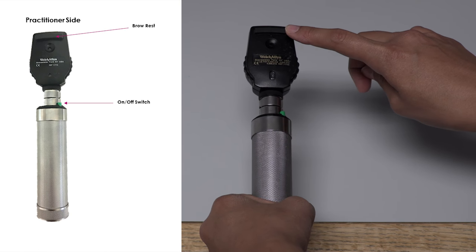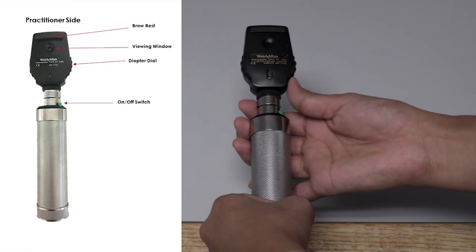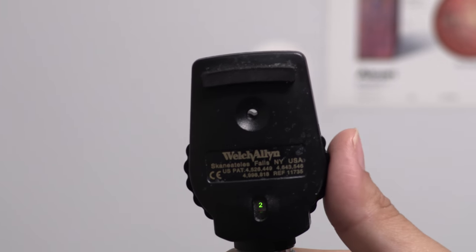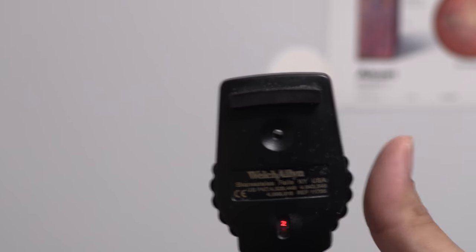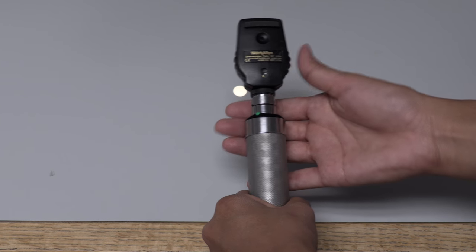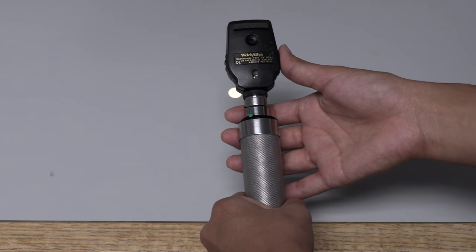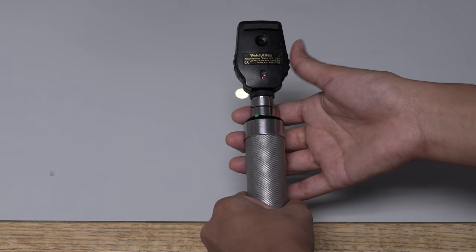This is the eyebrow rest. This is the viewing window. This is the diopter dial and this is the diopter display. The far-sighted eye requires more green numbers and the near-sighted eye requires more red numbers. If you do not wear glasses or contact lenses, set the diopter to zero. If you do wear glasses or contact lenses, you can adjust it by looking at an image about 10 feet away and adjusting the dial until the image comes into focus.